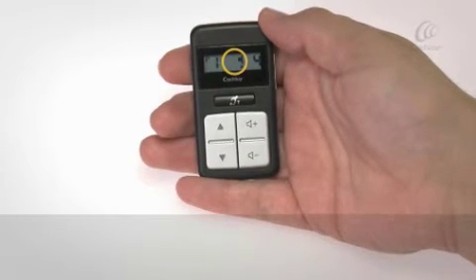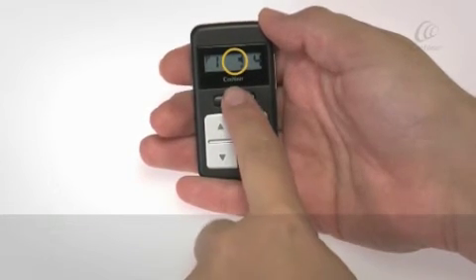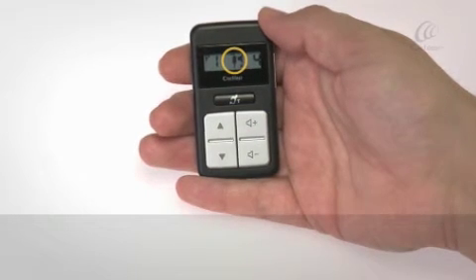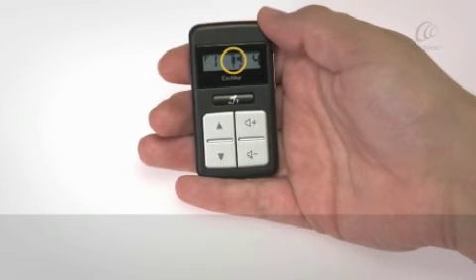To turn the audio accessory back on, press the telecoil button once. The accessory icon will appear.